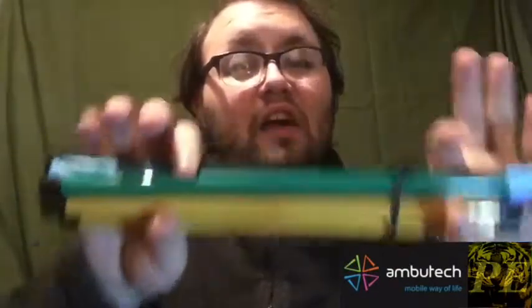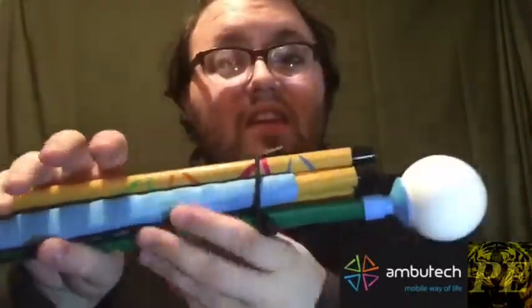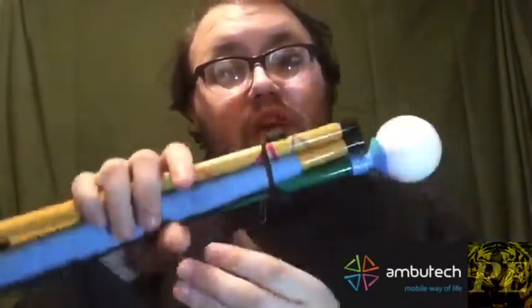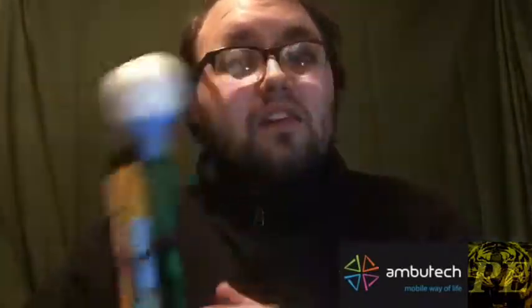What are we comparing this to? If you saw the first video, you already know we're talking about a custom-made cane sent to us by AmbuTech with specifications I personally like because of being an artist — the colors relate to me. This custom cane has all different colors. It is a mixture between a highlight cane and a color cane, which I'll get to in a moment.